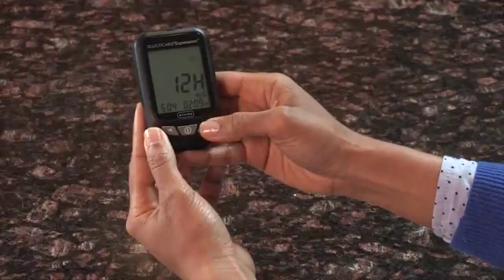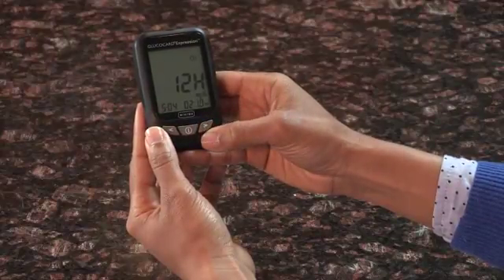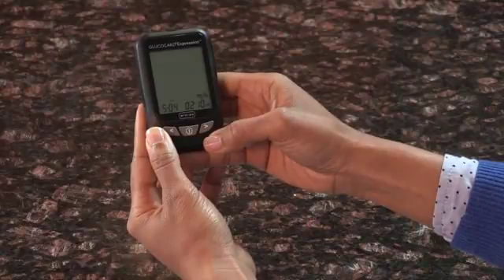Press the left or right arrow until the correct minute is displayed. Press Enter to confirm your choice and finish setting the clock. After the date and time has been set, the meter will announce the date and time if the voice feature is on. Note that you may need to reset the time after changing batteries.